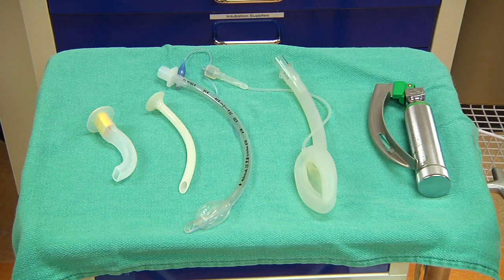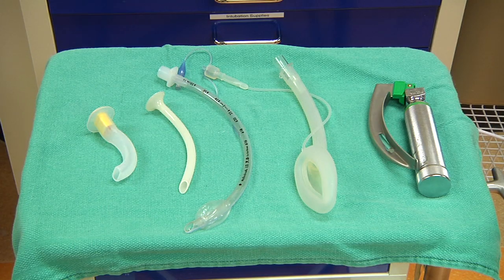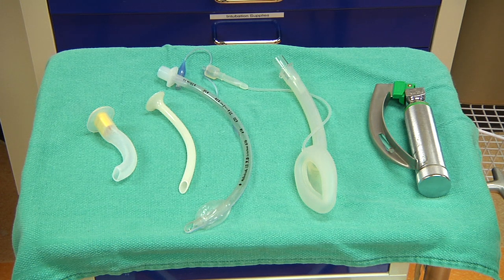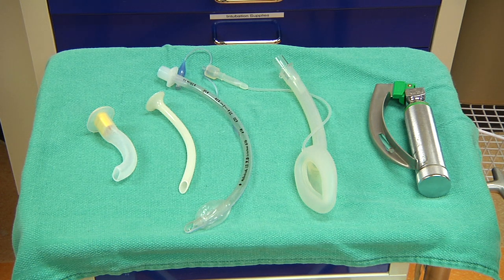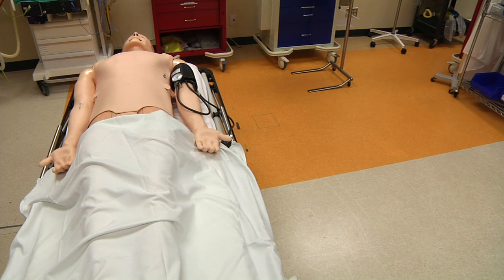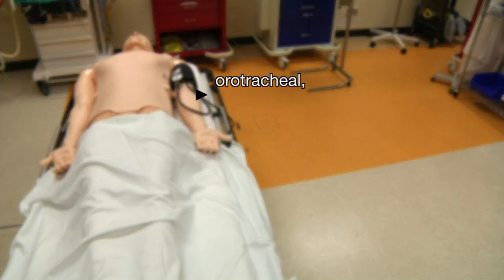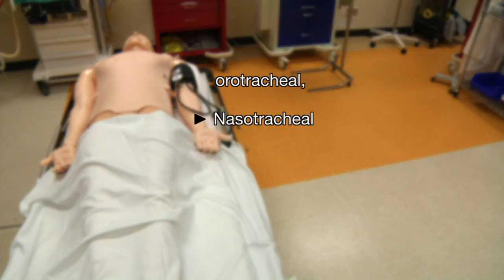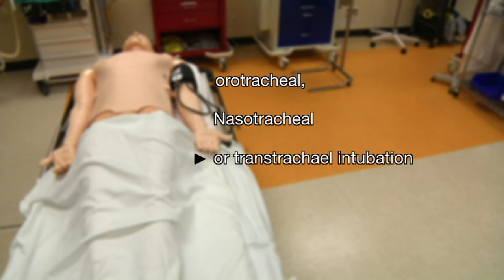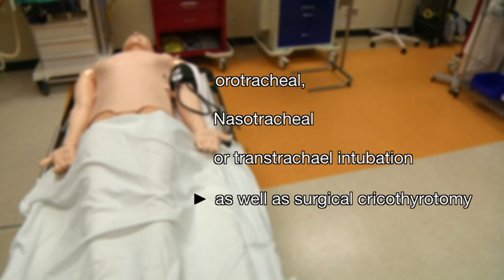A number of airway adjuncts may also be inserted, such as an oral or nasal airway, endotracheal tube, and laryngeal mask airway. In addition, the simulator will also allow for oral tracheal, nasotracheal, or transtracheal intubation, as well as surgical cricothyrotomy.